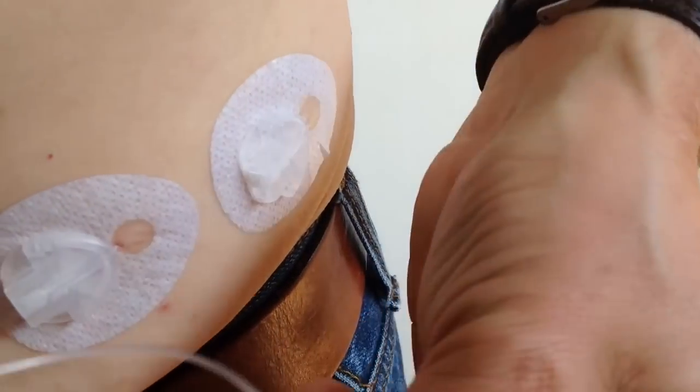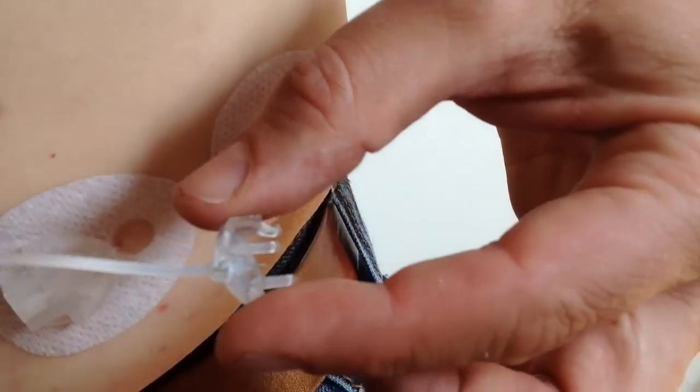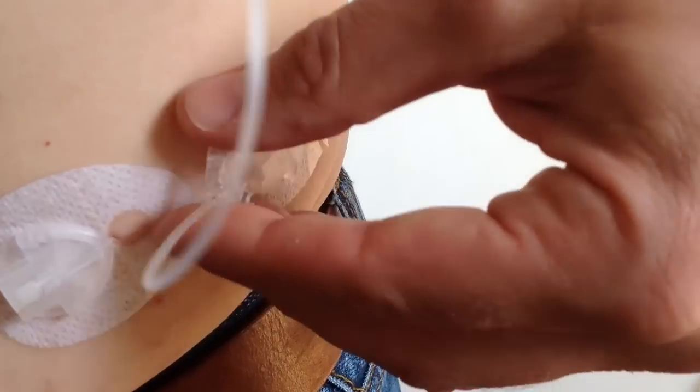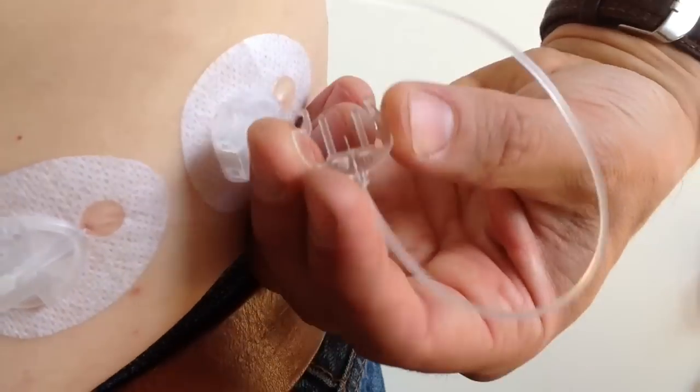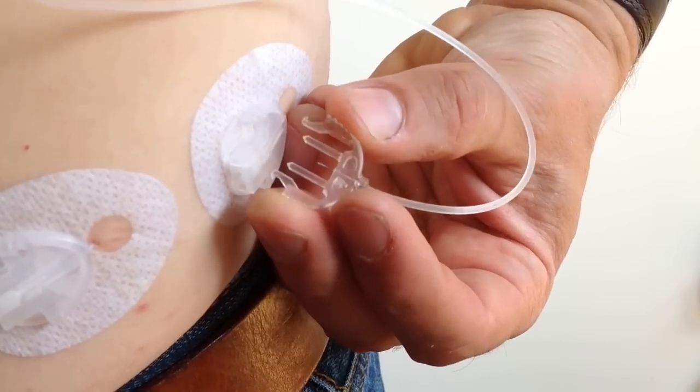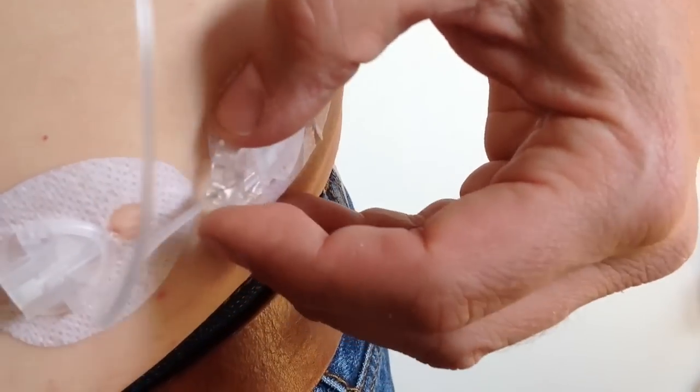And so now, there's the new tubing. It only goes into these sets one way. There are open holes on the back. And it's smooth on the top. Clip that in. I don't need this one anymore. So I'll, can't even get it out. There you go. Just peel that one off.